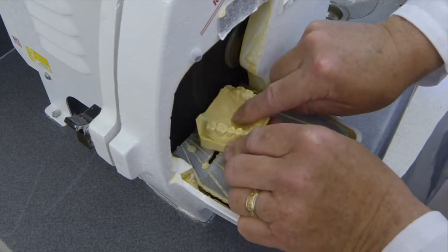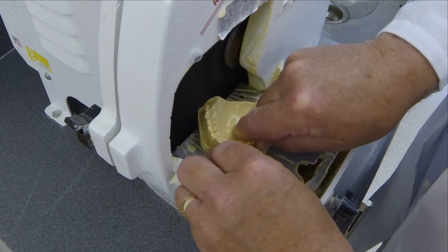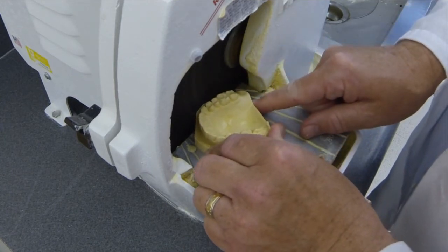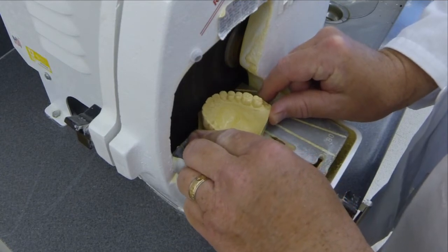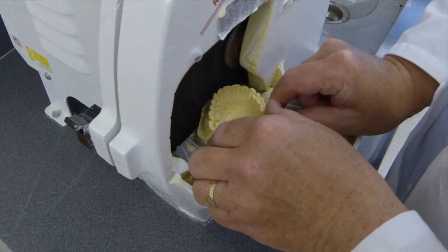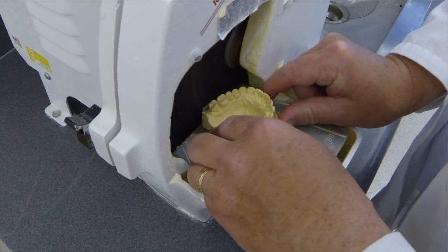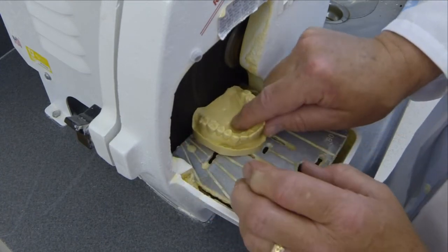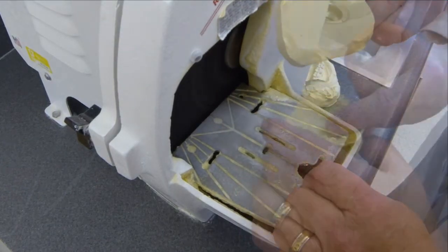And then as a final step, you set it on and just gently roll the model across the blade, giving it a nice rounded, mountable shape. Again, watch your anterior teeth so they don't get into the blade. Continuing around. So now all of the sharp angles have been replaced with a nicely rounded model.